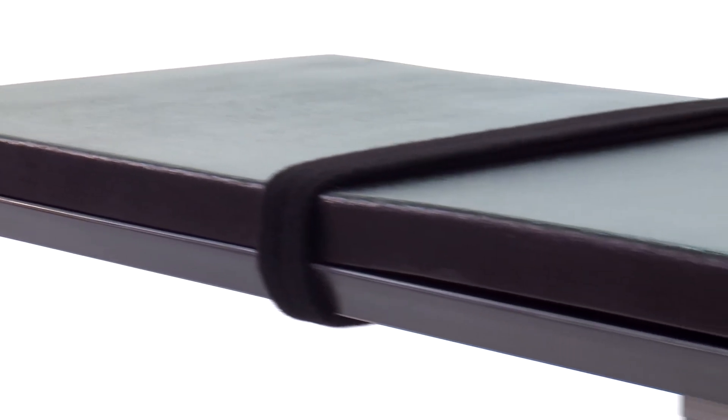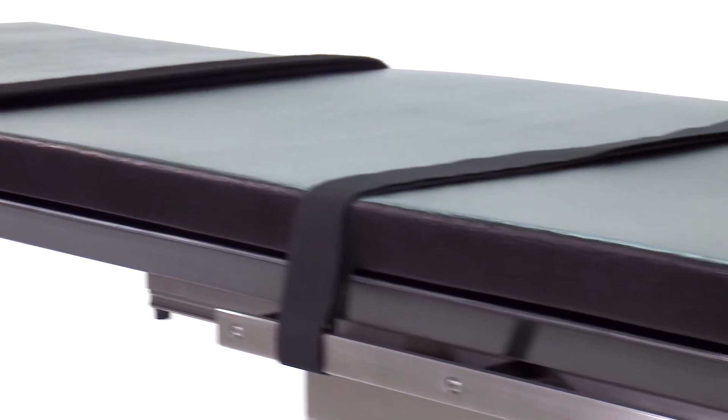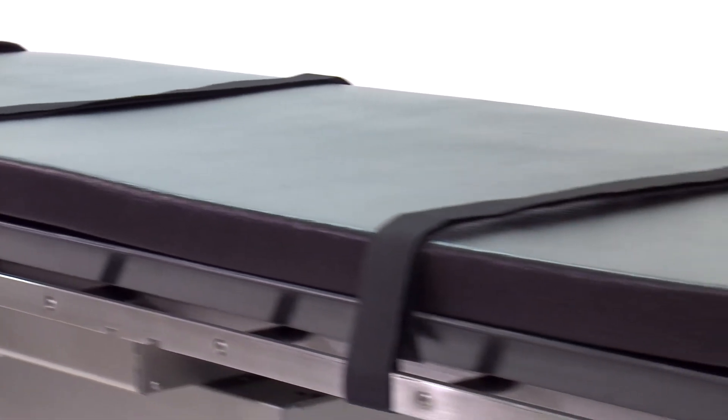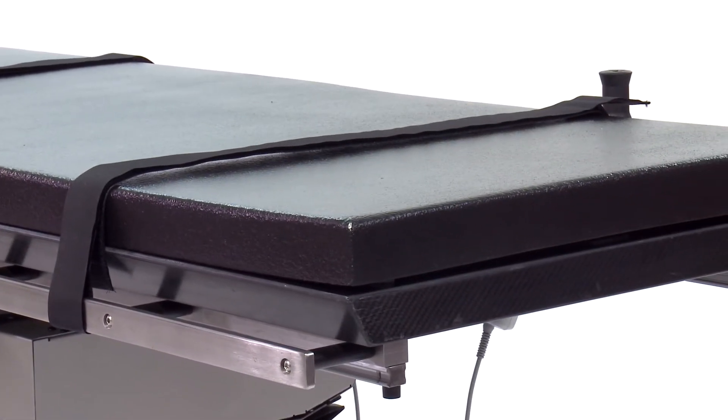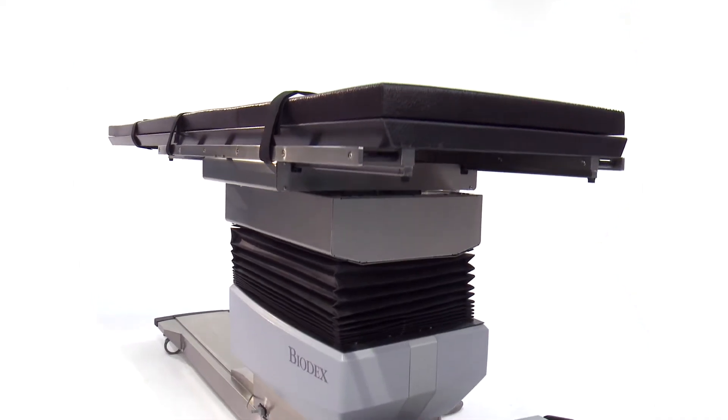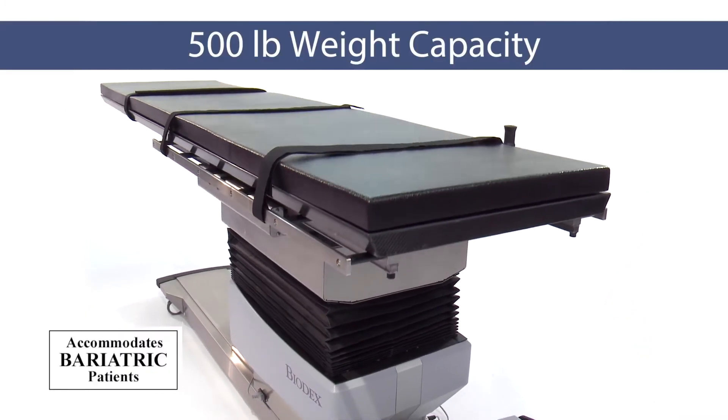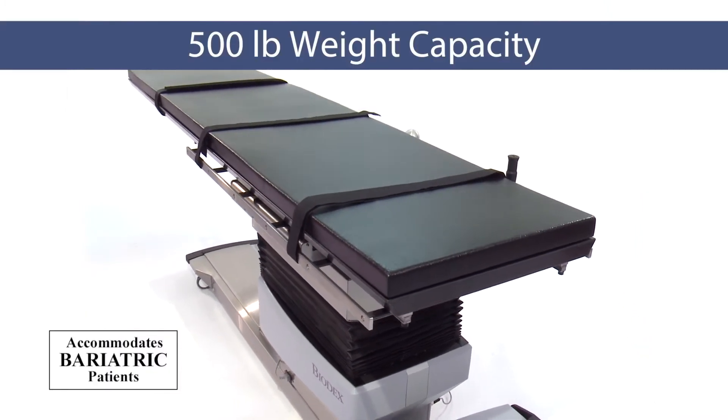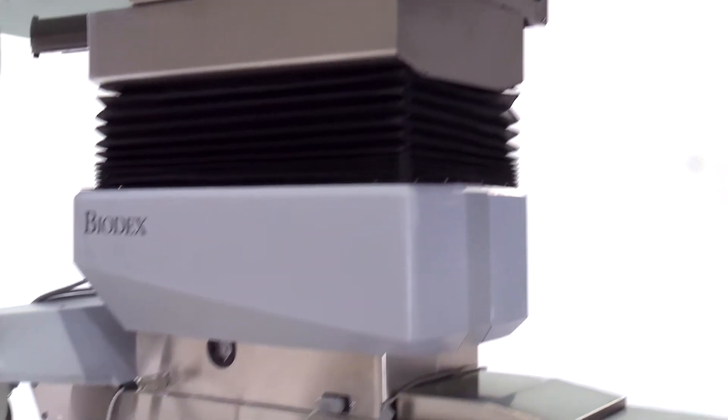Two-inch thick table padding and three adjustable straps ensure patient comfort and stability. An ample 500-pound weight capacity makes this table suitable for bariatric patients. And the low-profile base is encased in stainless steel for easy cleaning.